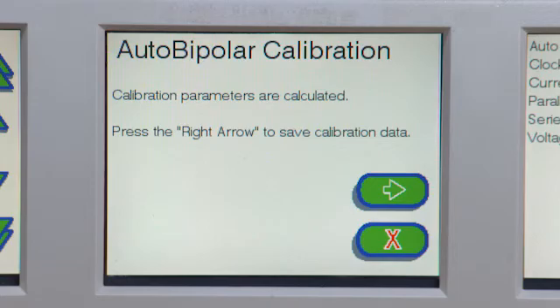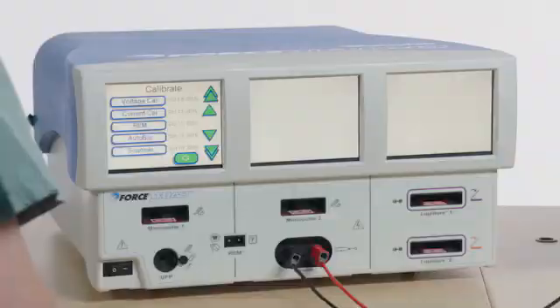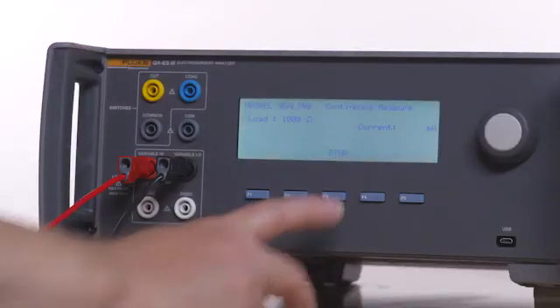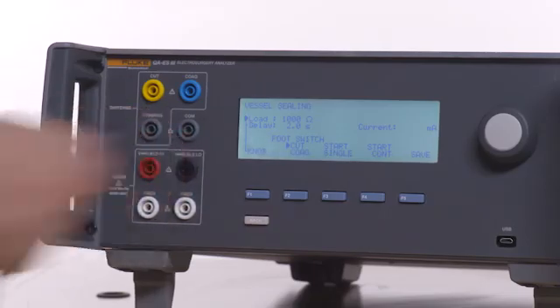When the on-screen instructions have been completed, select the red X on the Force Triad to exit. Press F3 on the QAES-3 to stop the test. Remove the test leads.